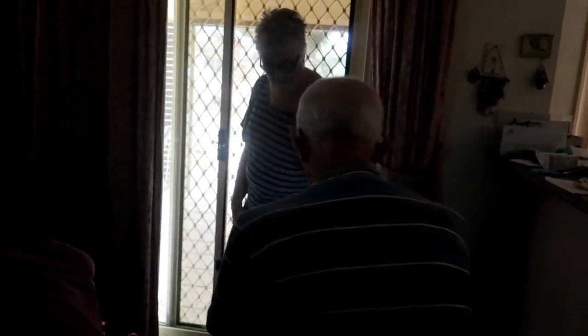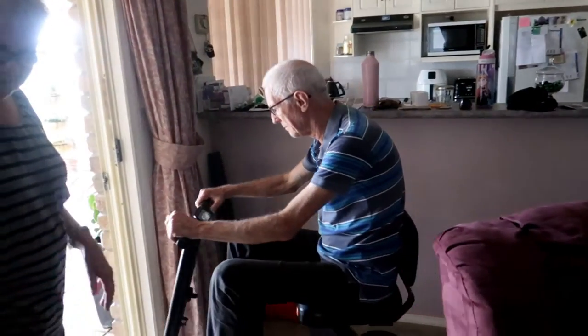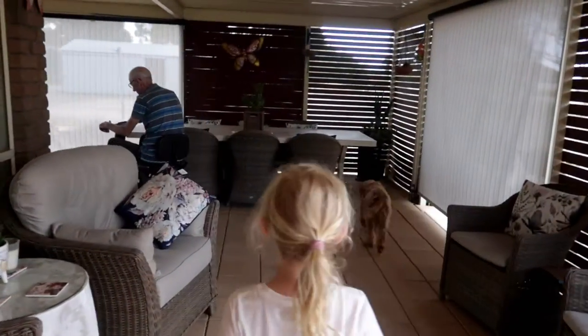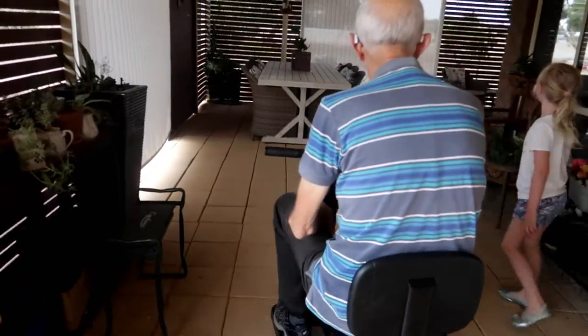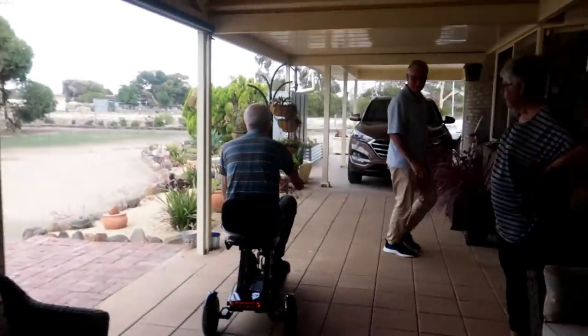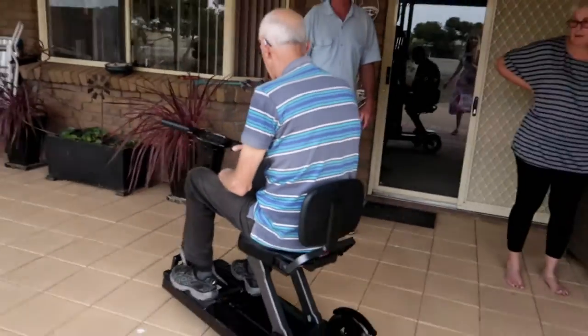Now you can do park run with Mum! Off he goes! We have to walk very fast to keep up with you if you're going at speed four — that's a slow jog. I would never keep up with him on that one.